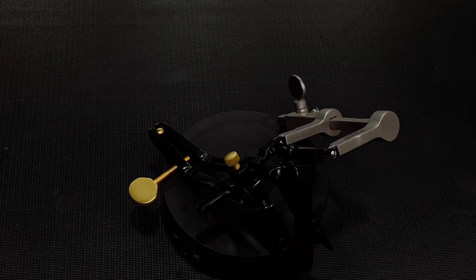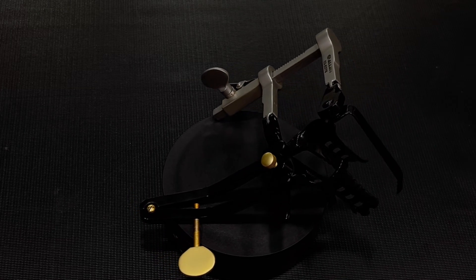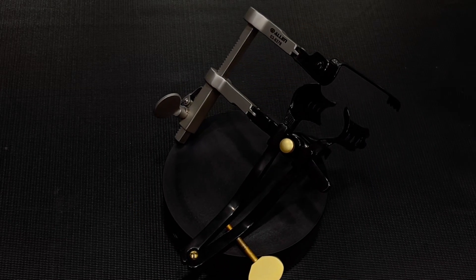Crafted with unparalleled expertise, this retractor is not just a tool, but a testament to Allen Surgical's commitment to innovation and excellence.